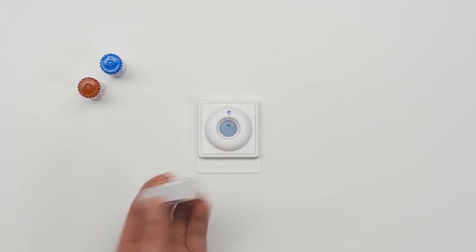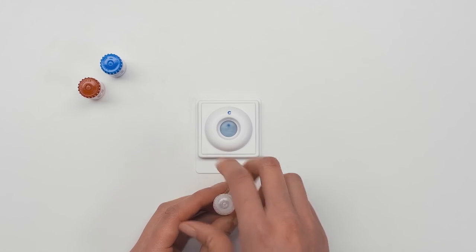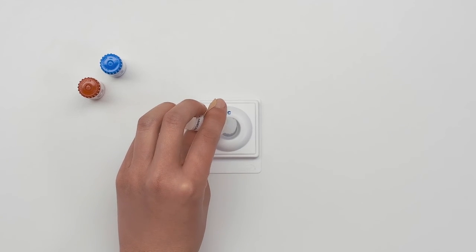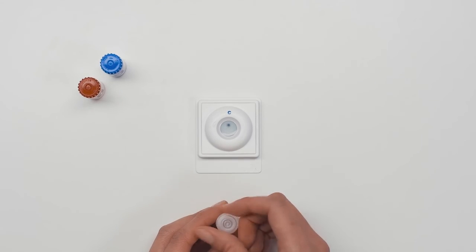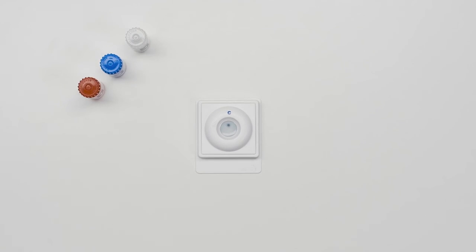Shake bottle 3 four times and pour all of the liquid into the test device. Wait until the liquid disappears.